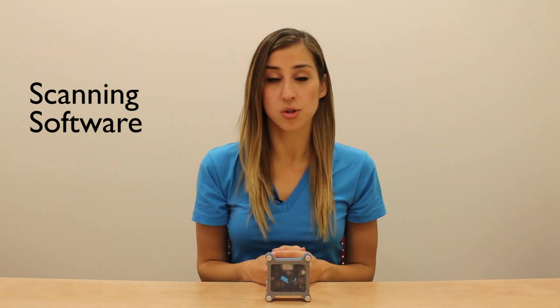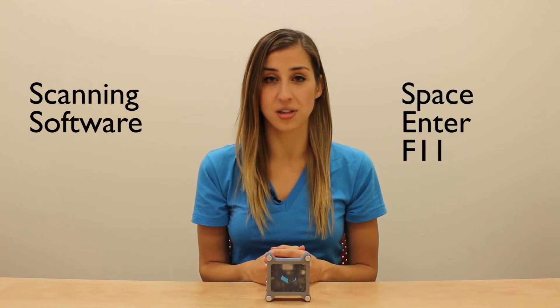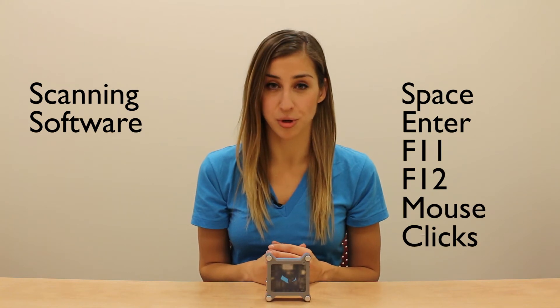You'd also use this mode for other scanning software that uses space, enter, F11, F12, and mouse clicks on your computer.